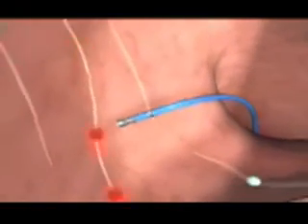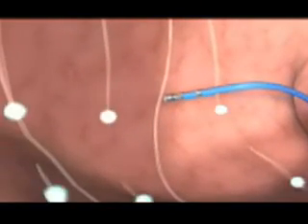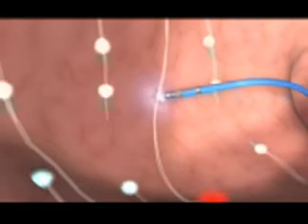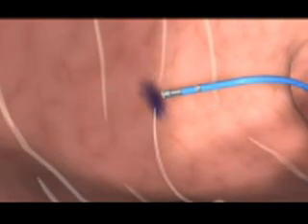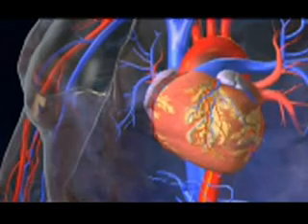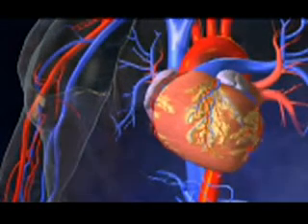Once the catheter reaches the target site in the heart, electrodes at the tip of the catheter emit radio energy. This energy will heat and destroy the heart tissue causing the abnormal rhythm. In most cases, the heart returns to a normal rhythm following ablation.